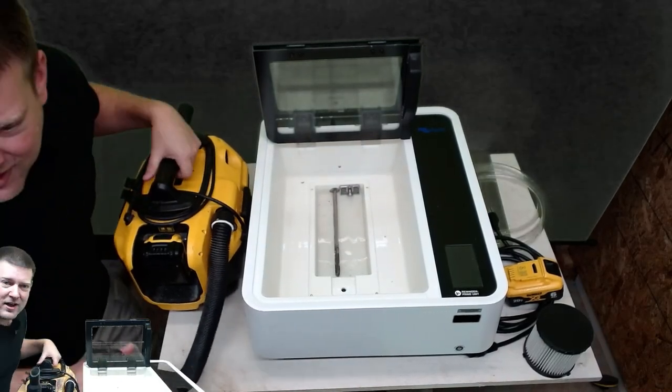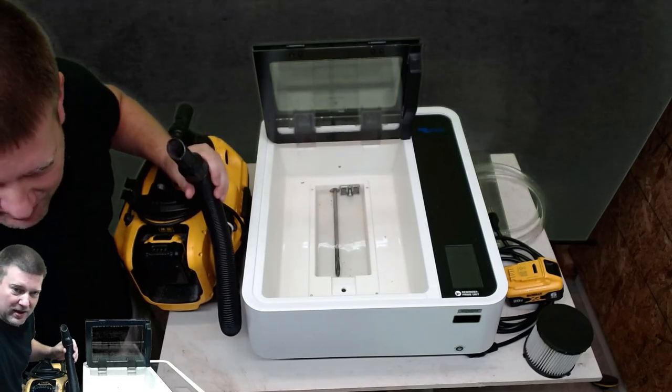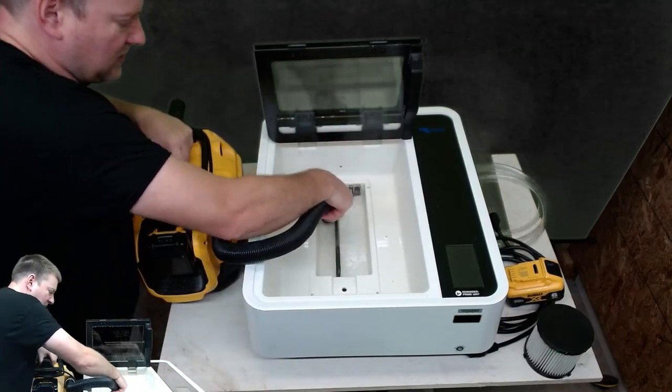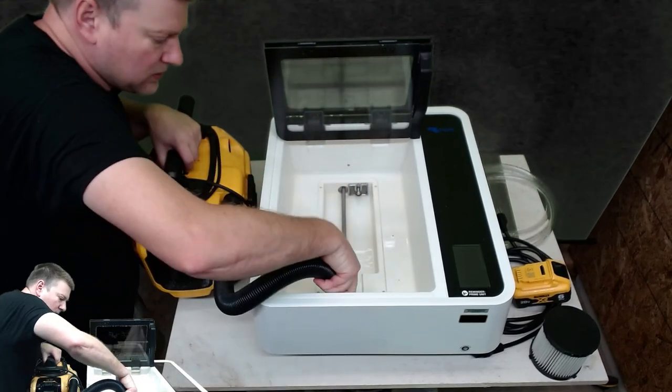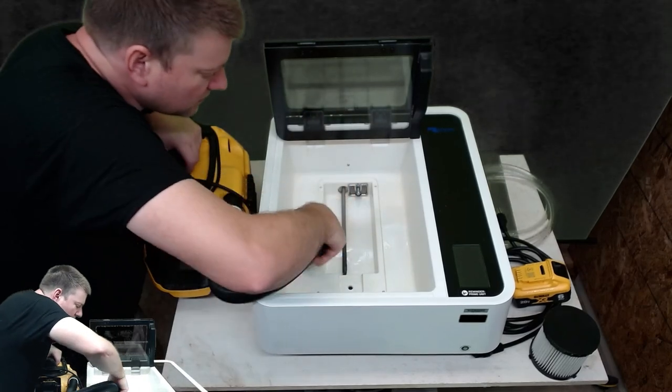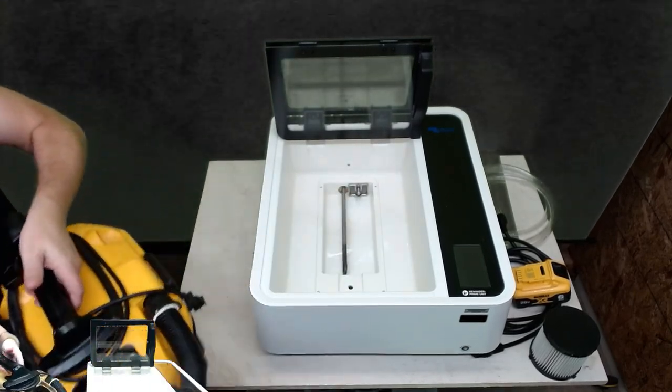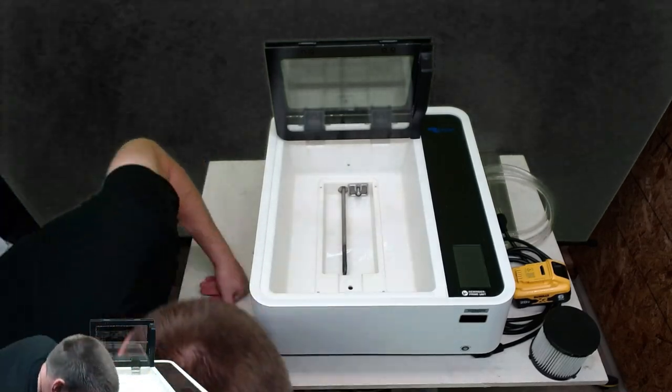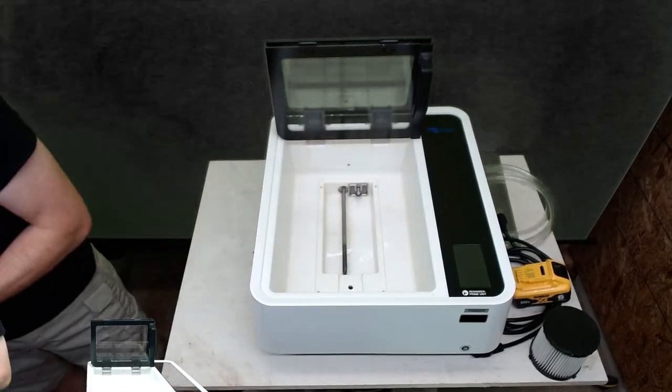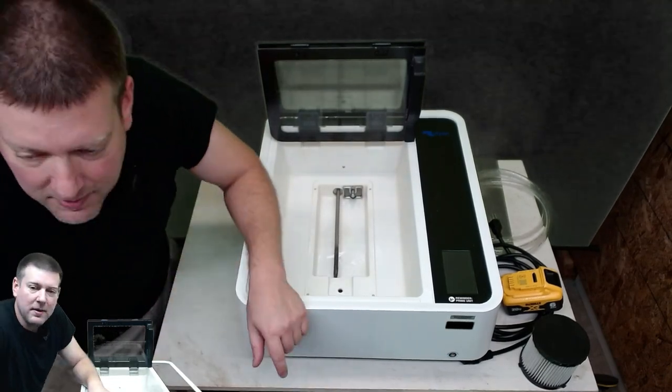Here we go - wet-dry vac. There is nothing that cleans out these devices, fluidotherapy, whatever, faster than these battery-powered wet-dry vacs. So convenient, plus I can pick it up and move it around. There we go, all the fluid is in here. Now I have a nice clean chamber where I can just wipe it out with a rag really quickly and easily. It's ready to go back into service for the customer.